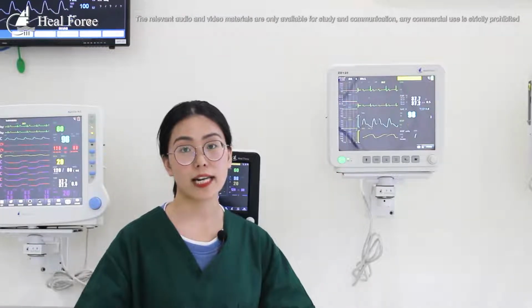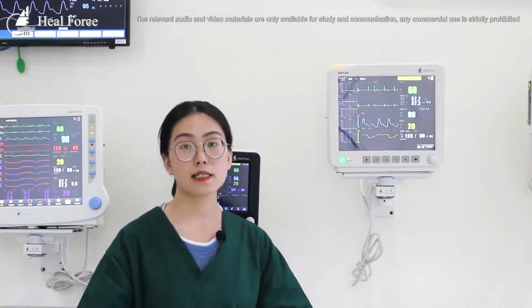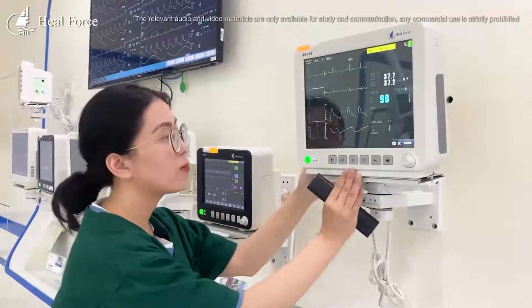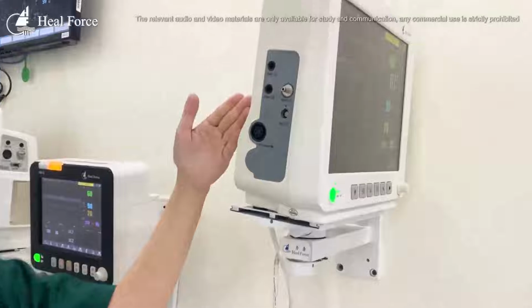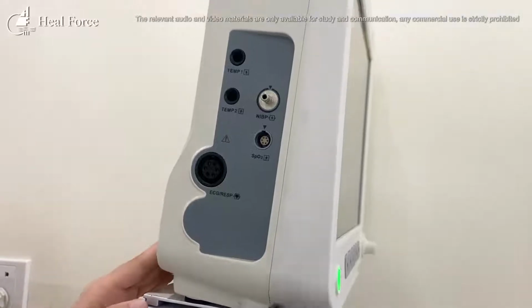ZD120 can transfer data to another different monitor. It has basic 6 parameters like another monitor. We can see temperature, NIBP, SpO2, and ECG, RESP.